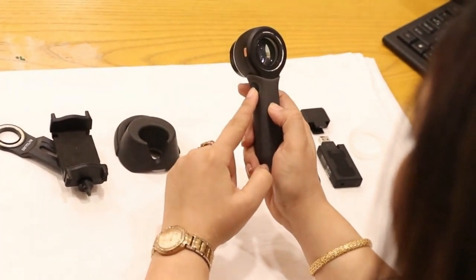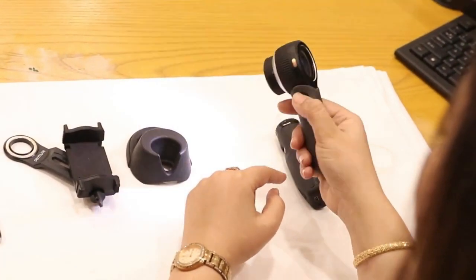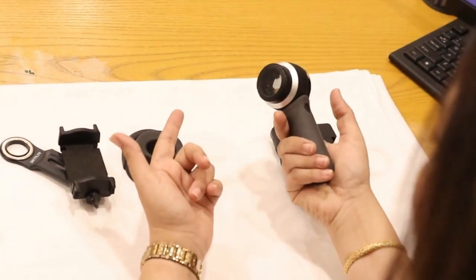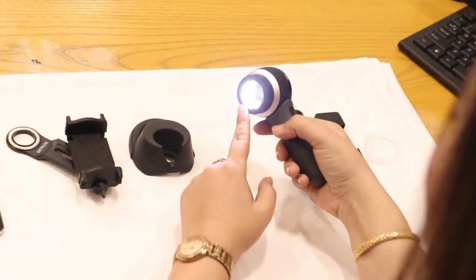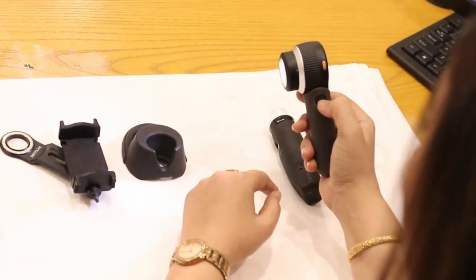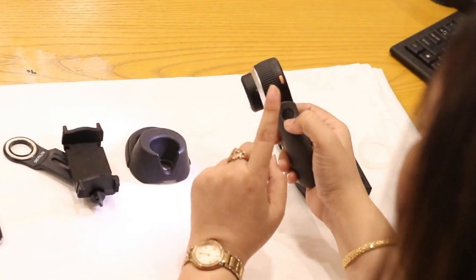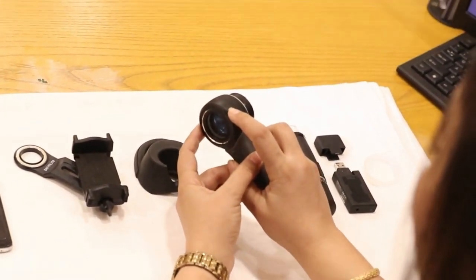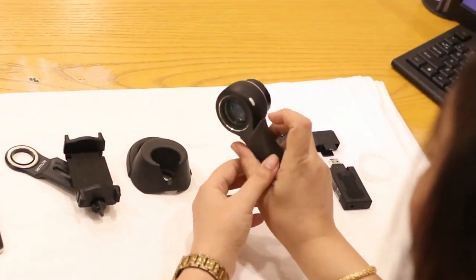It has got a start button on the right side. With a shorter press of the start button we can turn it on, and with a little longer press we can turn the device off. When we short press this button, it turns the device on in polarized mode, and then we can toggle between the polarized and the unpolarized mode with short presses. The same is possible with using this silver button, which is capable of toggling between polarized and unpolarized mode.